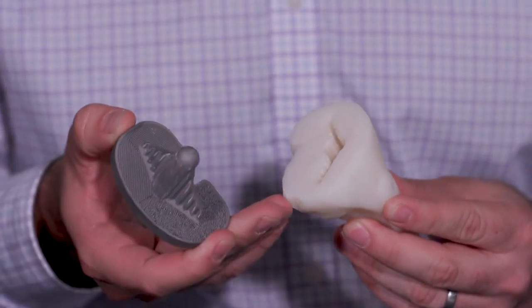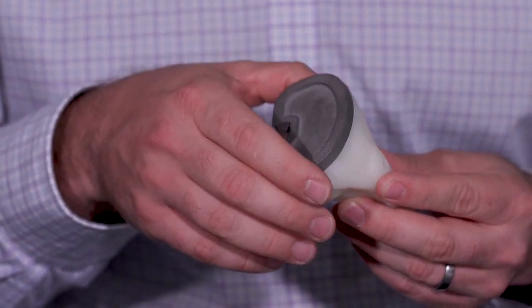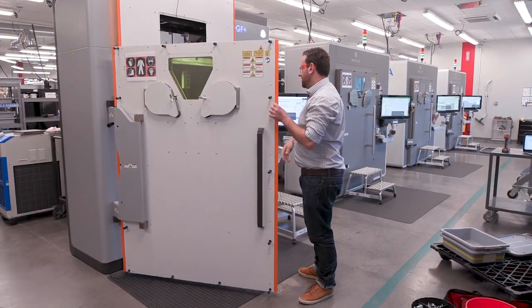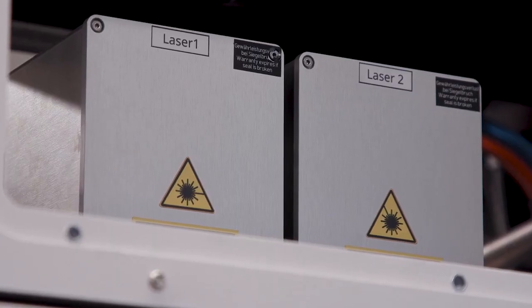These implants are conventionally manufactured using forging or casting. How are we producing them now? With porous laser sintering, it's always been difficult to produce a commercially cost-effective device at the level of productivity that we need to compete with castings. This is now being produced on the Flex 350 dual, where we see a significant — more than double at times — production capability based on the multi-laser as well as the thicker layer thickness.